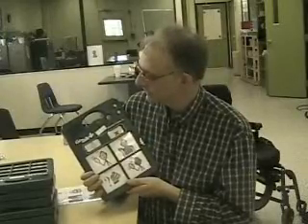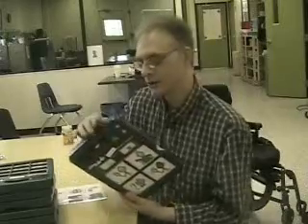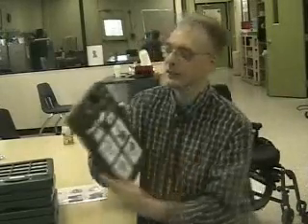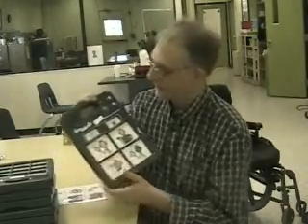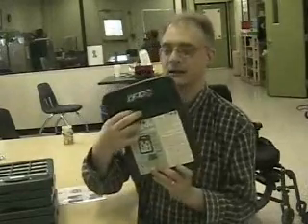In fact, let's go ahead and record one. Let's go ahead, turn it on. Okay, I'm going to push this button right back here, and you'll see that it's flashing number 4, and that's the level that I'm going to go ahead and use right here, right now. I think. Let me see. Right. Yep, that's the one I want to record over. Okay, so I push this button in the back.